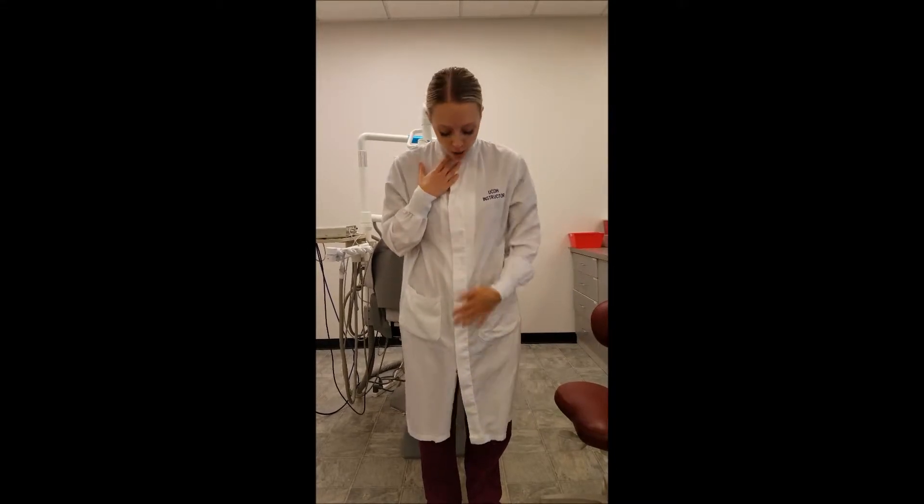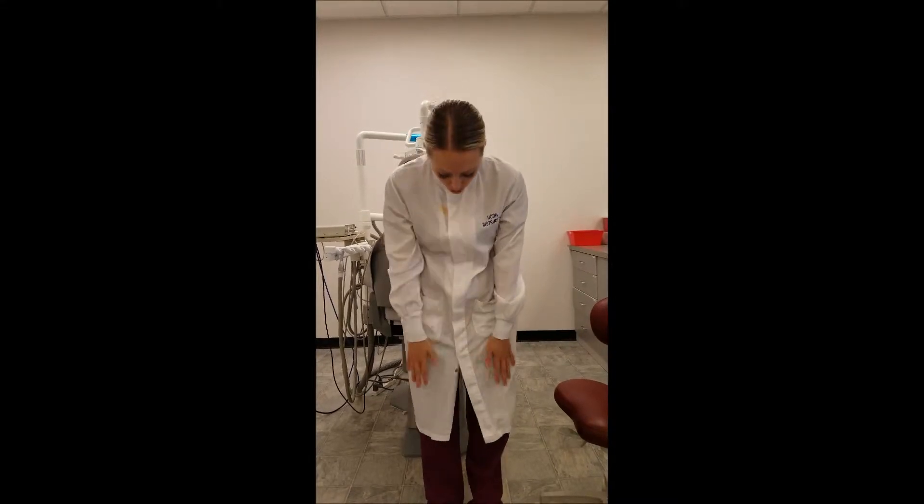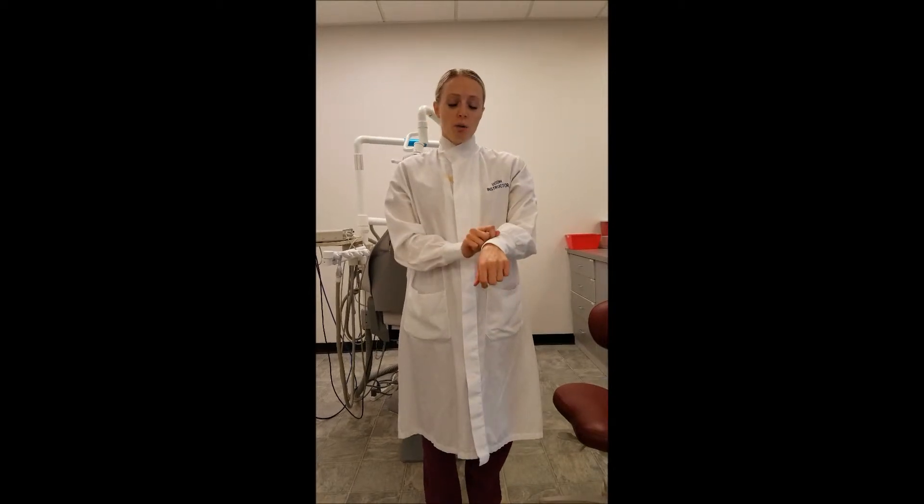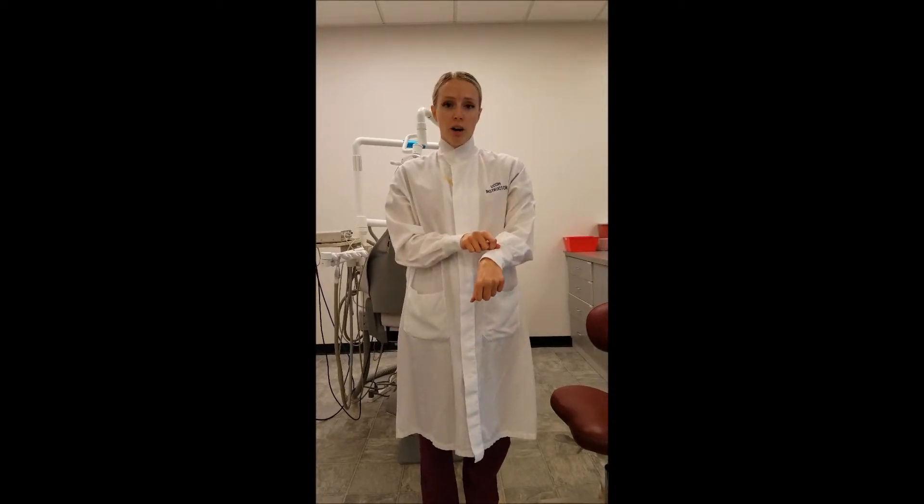Identify and demonstrate proper lab coat use and wear. We need a clean, new, unwrinkled lab coat each day. It should be fastened at the neck, buttoned all the way down, and should cover the knees. Gloves should always cover your cuffs, and you should never place gloved hands into your pocket. The lab coat should never be worn into the restroom.